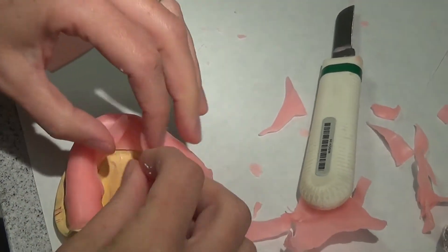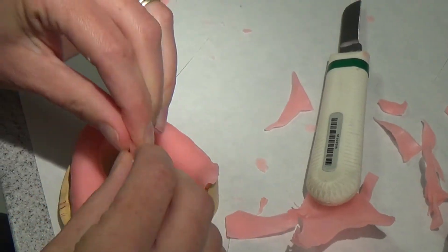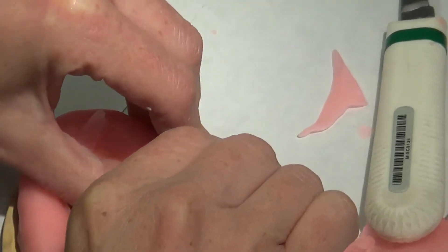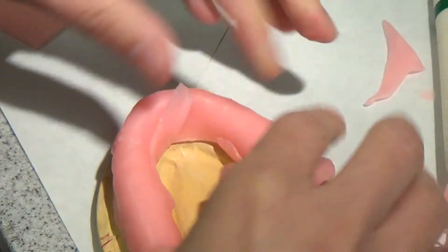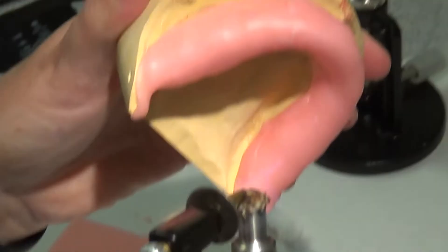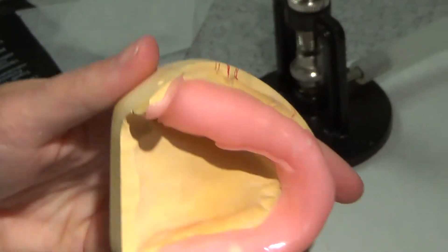So where I over-trimmed a little bit, I'm just coming back with these two smaller pieces and adding it. Now I doubled that one over, so I really squeezed it to thin it out. I'm gonna heat it, blend them together.